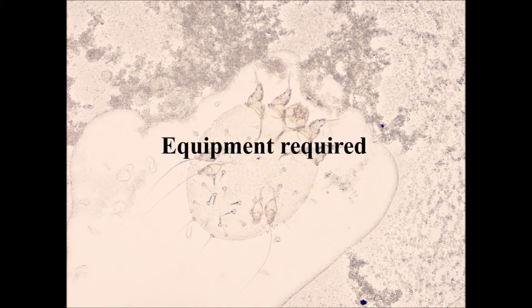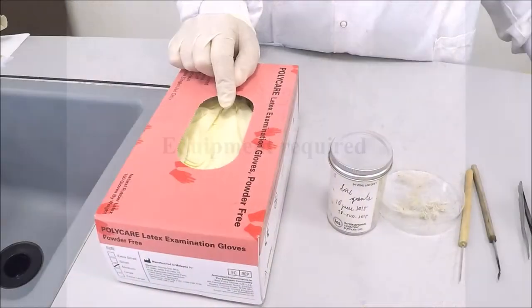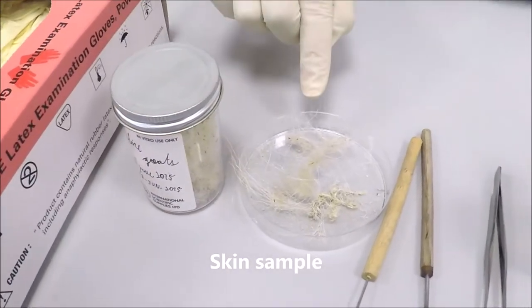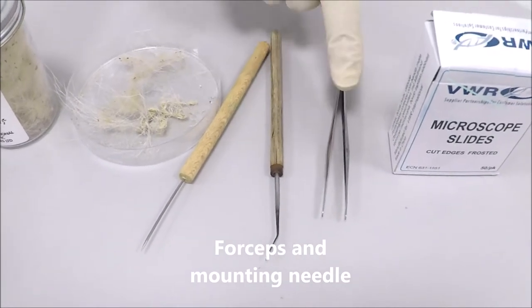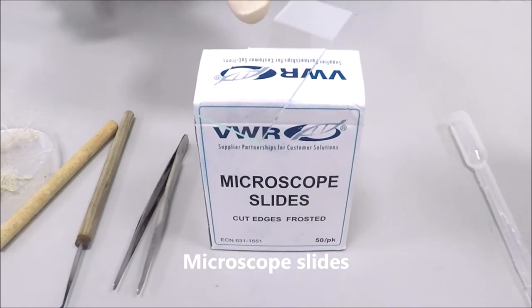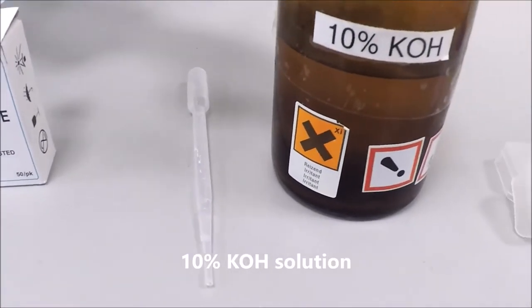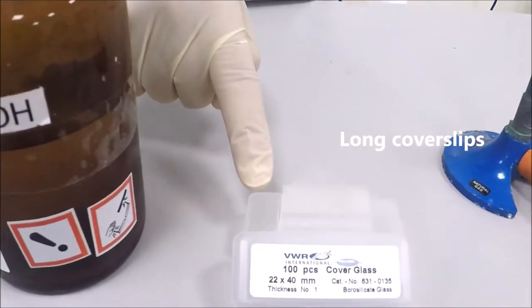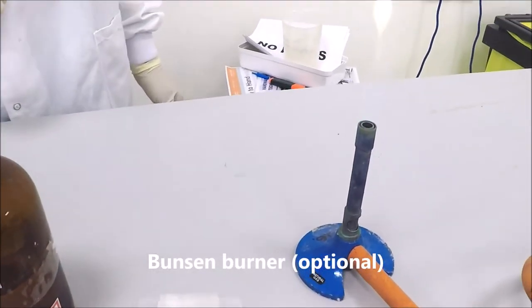The equipment required: gloves, your skin sample to be analysed, forceps and mounting needle, microscope slides, Pasteur pipette, 10% KOH solution, long cover slips, and a heat source or Bunsen burner, which is optional.